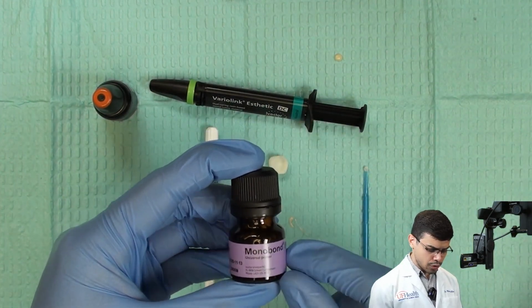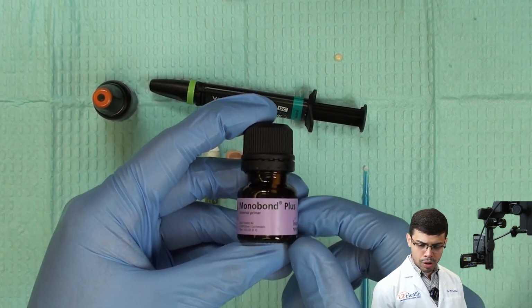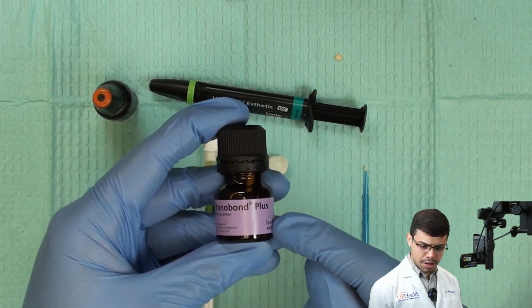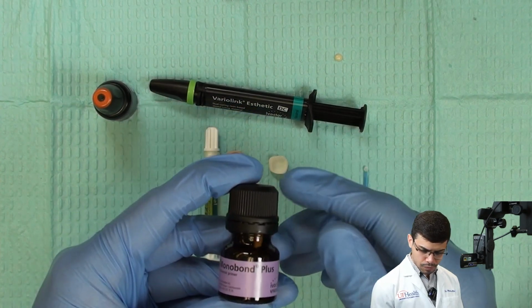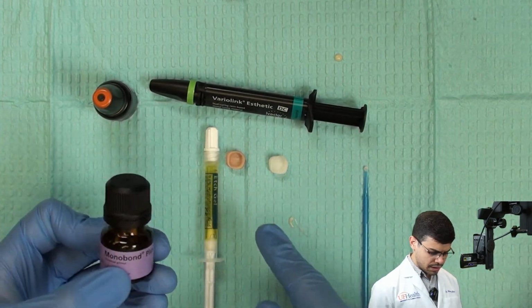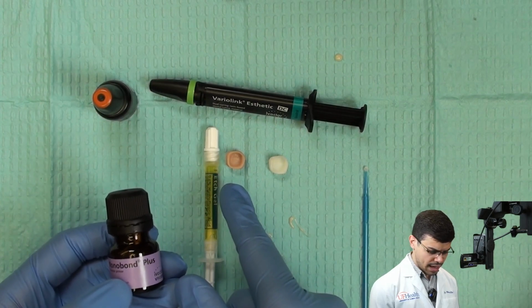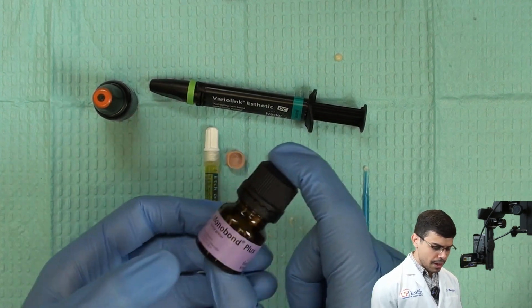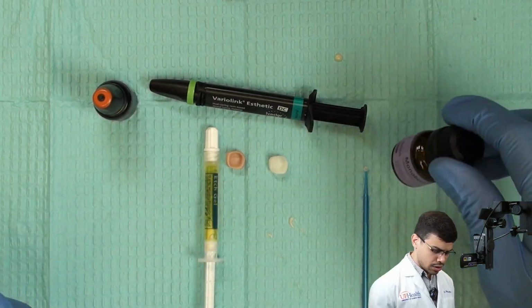Monobond Plus is a universal primer that can prime any type of ceramic material, alloy material, or high noble alloy material, okay? In this one, you're gonna have silane, you're gonna have MDP, and then you're gonna have a sulfide methacrylate that will bond to gold. Very nice. Since this is Monobond Plus and contains silane and MDP, it's gonna go well with the glass ceramic because it has the silane, and it's also gonna go well with the zirconia because it has 10-MDP. Pay attention that sometimes we have pure silane in the clinics. That only works with glass ceramics, all right?